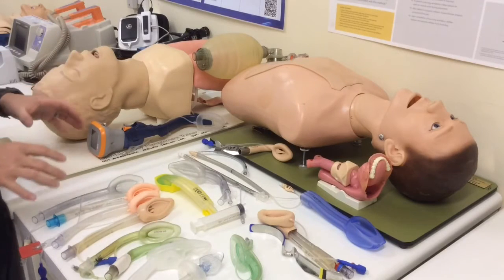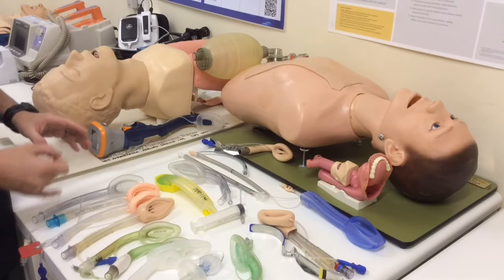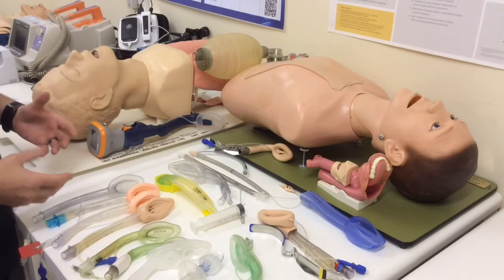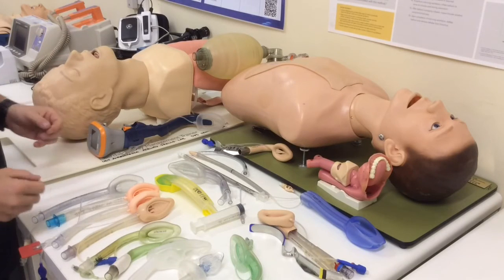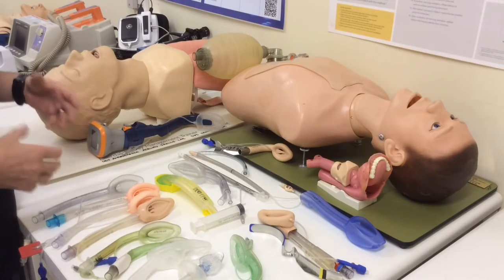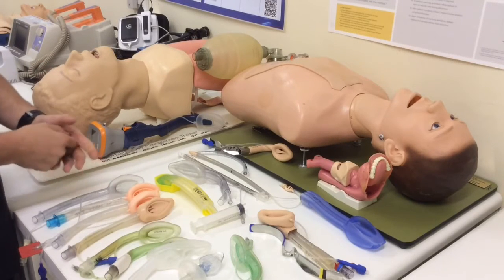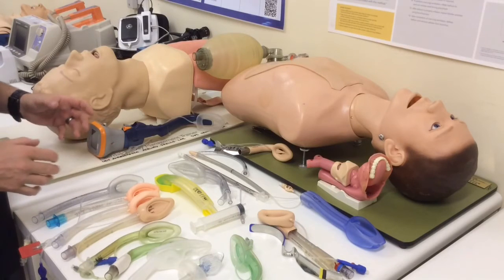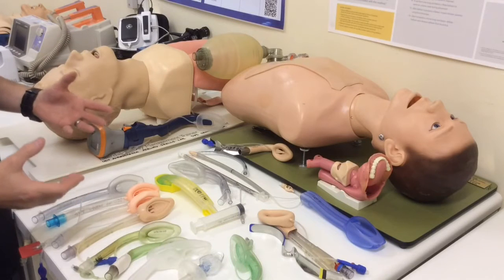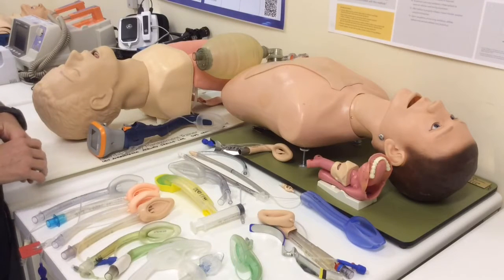In the emergency setting, we've got to be thinking about, down the line, are we going to want to ventilate this patient? So we might want a device that has got improved sealing pressures. Are we going to try and protect this patient against aspiration? So we're probably going to want a second or third generation device which is going to offer some kind of gastric drainage and aspiration protection. We might want to place a nasogastric tube, for instance, and decompress the stomach. And then we've got to be thinking as well, am I going to need to move on to using the supraglottic as a conduit to intubation? So those are some of the thoughts that are going around in my head.